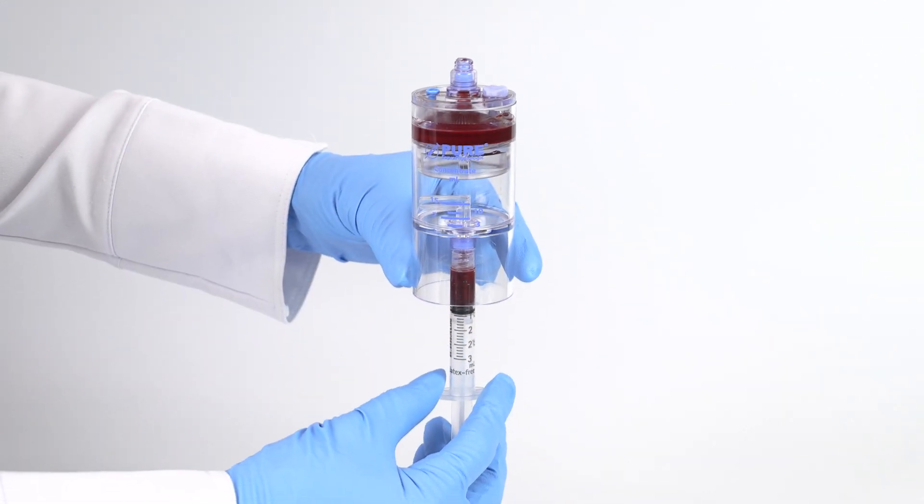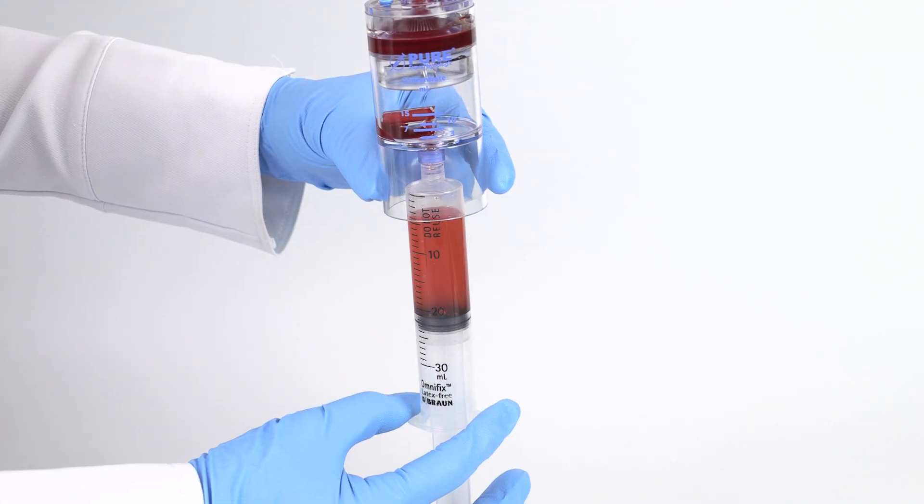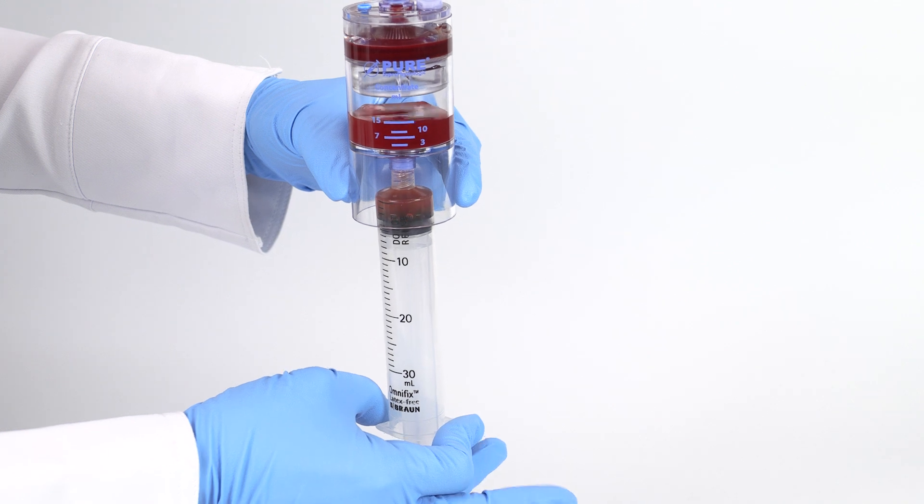Transfer the aspirated solution into the concentrator device as shown. Inject the bone marrow red blood cells first, then the bone marrow plasma suspension.